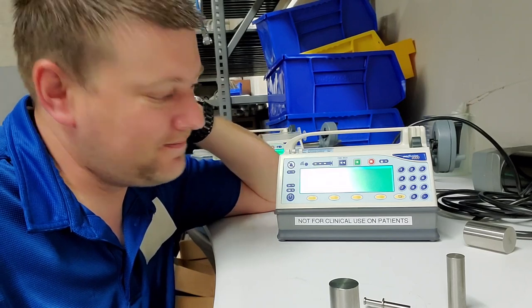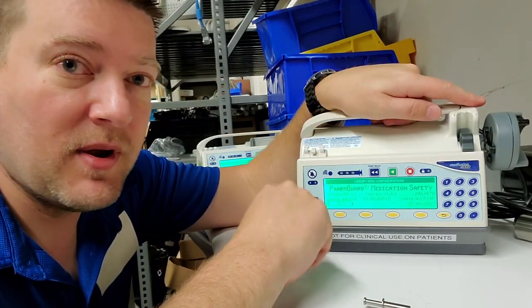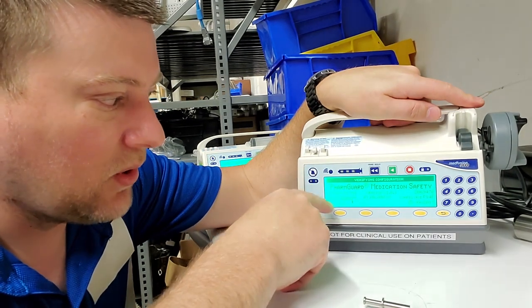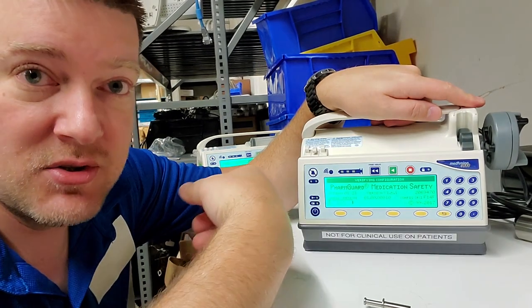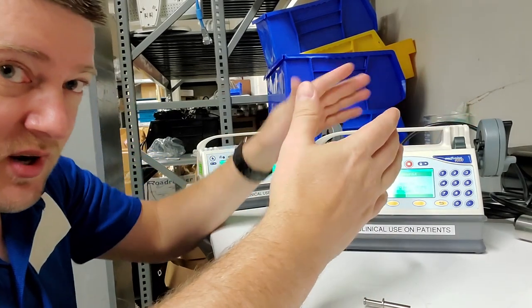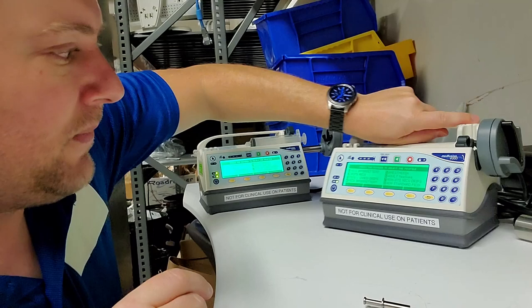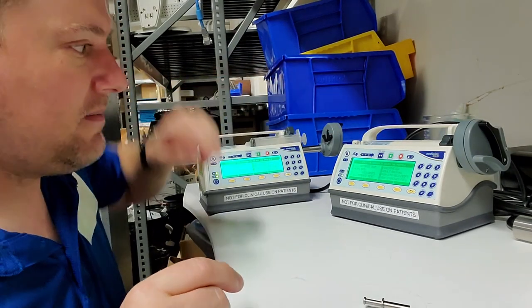When the pump boots up, it goes into a self test and calibration check, then it checks the battery and does a drug library load. Whatever the latest drug library is, which is updated by pharmacy not by us, it will load that.